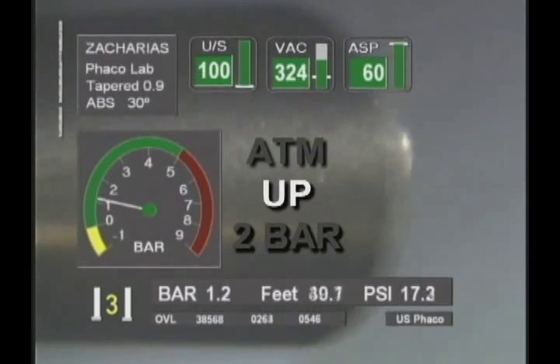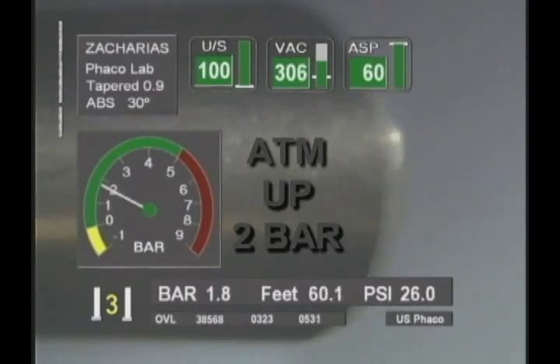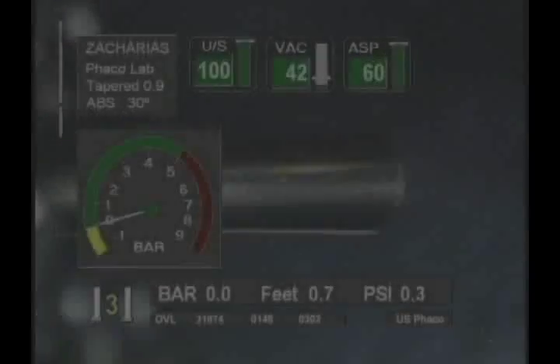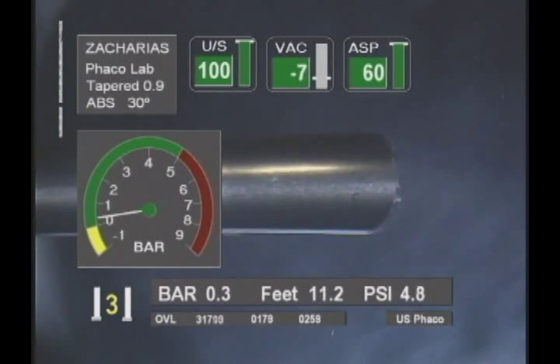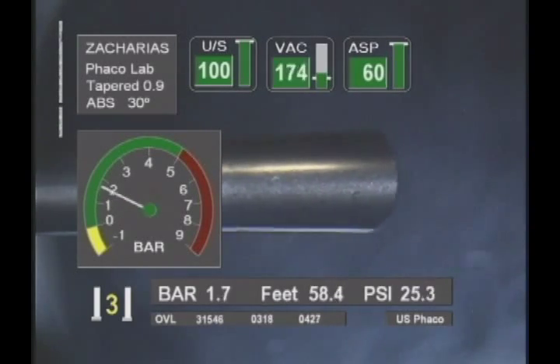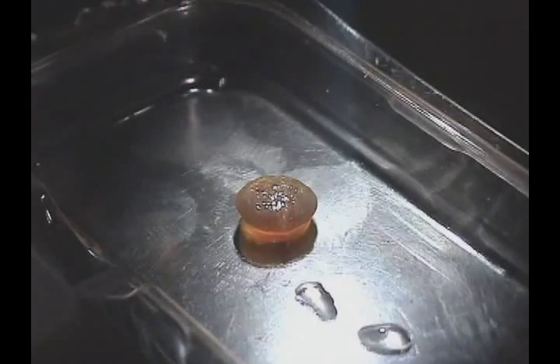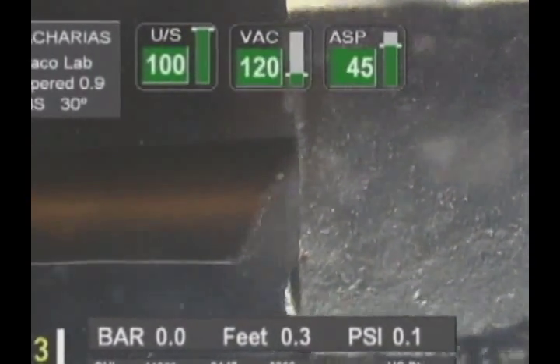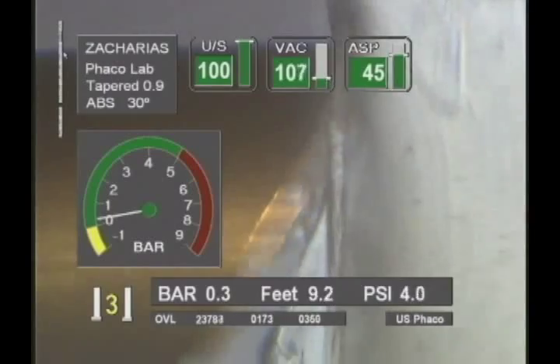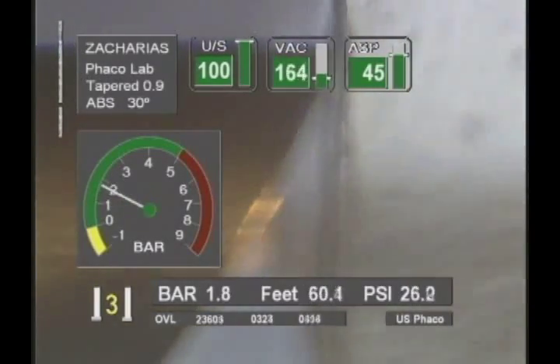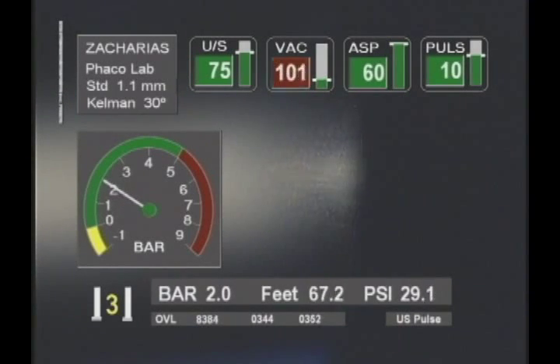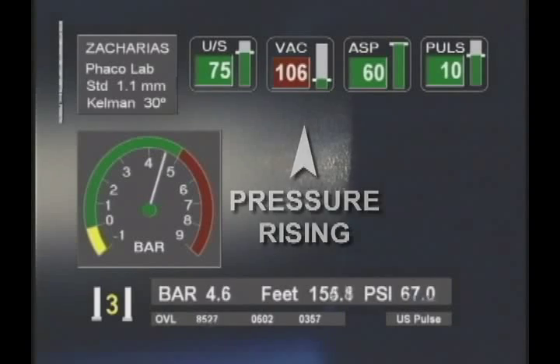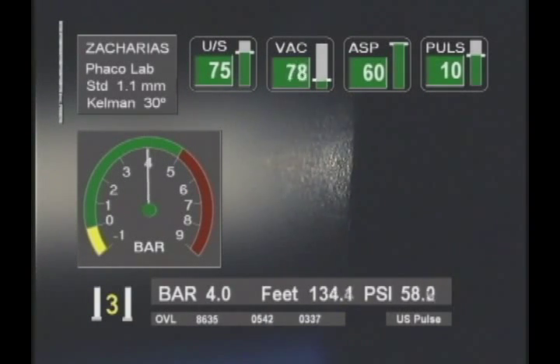When pressure was raised 2 bar above atmospheric pressure, all cavitation at the distal portion of the phaco tip was suppressed. Cavitation patterns at the phaco tip, as well as their response to pressure, could differ when the tip of the phaco probe is in proximity to a solid body. For this reason, we tested cavitation suppression by pressure with the phaco tip in close proximity to a silicone rubber phantom. As expected, all evidence of acoustic cavitation was cancelled by pressure even in areas where the phaco tip was almost embedded into the solid body. Tests conducted up to 5 bar above sea level pressure showed not a single bubble, probably because of dissolution of all gases into the liquid.